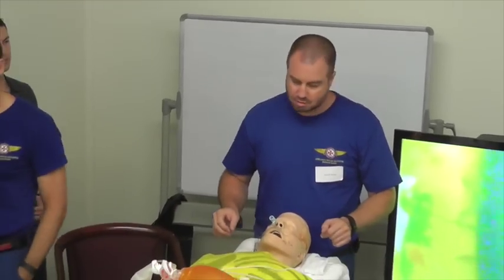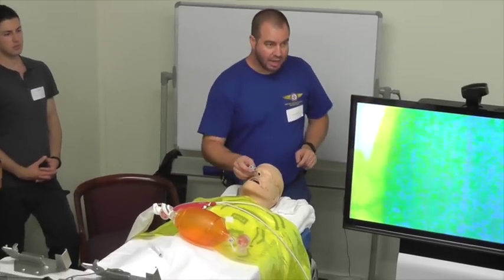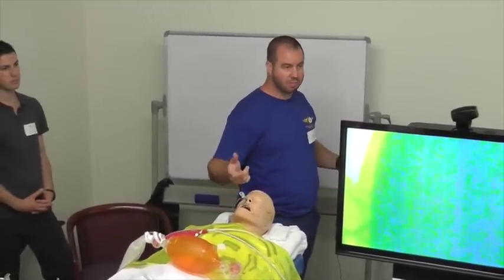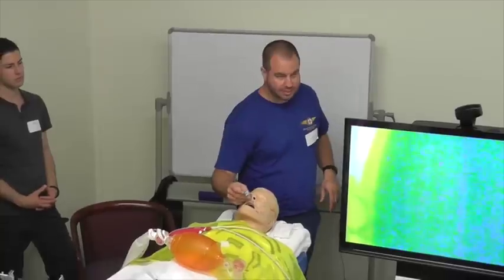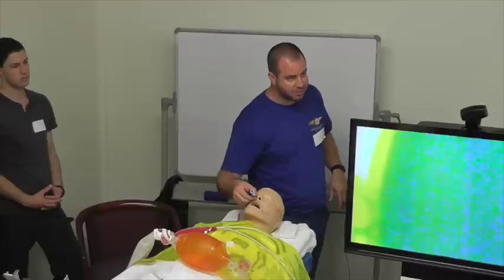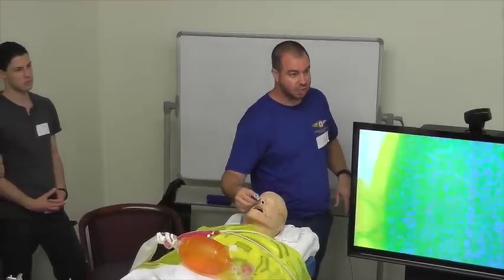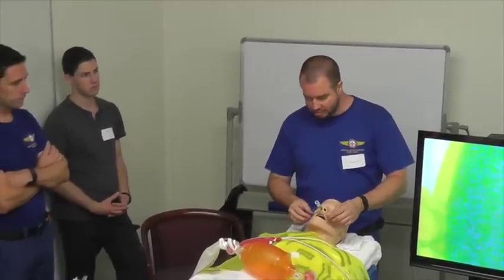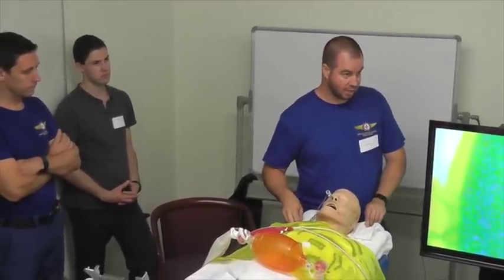Questions? Thoughts? Queries? Depth of insertion? Apart from directly, physiologically, it's best to be able to measure it from the primary carina. Often we tend to find that most patients will tolerate it going almost all the way in with a little bit of space, but if you fine tune it, you'll have better ability to secure that. And we secure that with brown tape. Whether you do trouser legs or tape around there, it's often the easiest way to secure that.